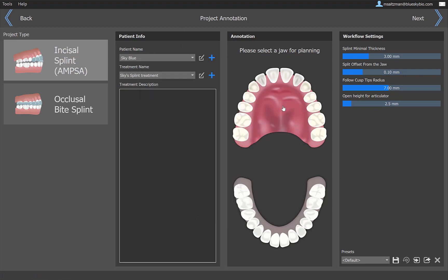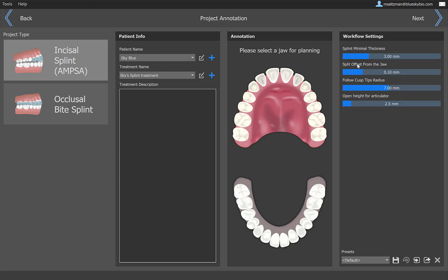We'll select the upper jaw, and these are the default settings. If you want to make a change now, you can make a change. You'll be able to make a change later. Either way, once you make a change, it's saved in the system for a later time period. We've also created the ability to share presets, which we're not going to get into now. I'll probably create another video on it. Basically, if for a particular treatment, you think you like presets set to a certain setting and you want to share it with other users, go ahead and share presets as well. These are some of the types of functionalities that we're introducing in our updated interface, which we're seeing now with the Splint. Once I have this done, I'm going ahead and clicking on next.